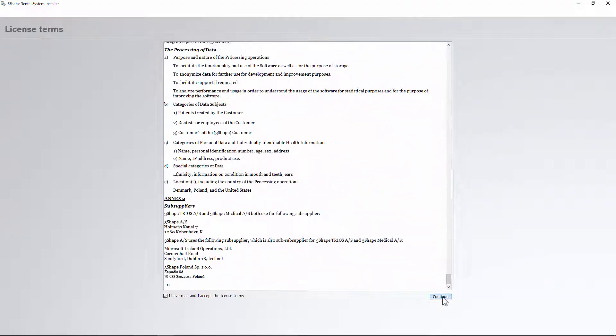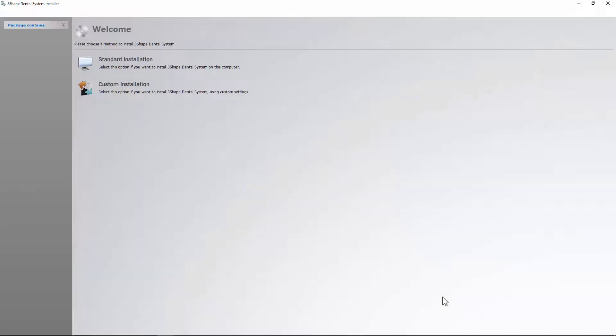Click the Continue button to go ahead. In the next step, you need to choose the kind of installation, Standard or Custom. Please click on the icon of Standard Installation to start it. It will take several minutes.